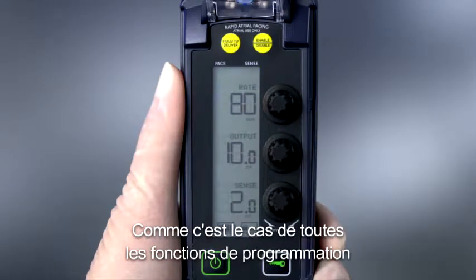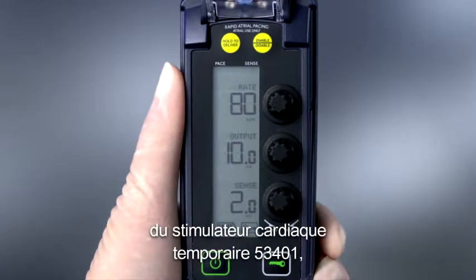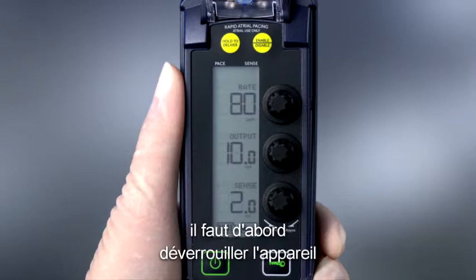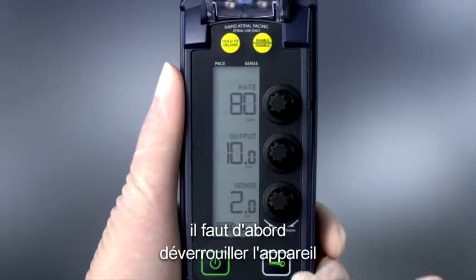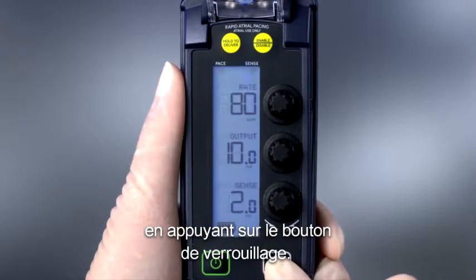As with all programming on the 53401 Temporary Pacemaker, the device must first be unlocked by pressing the lock button.